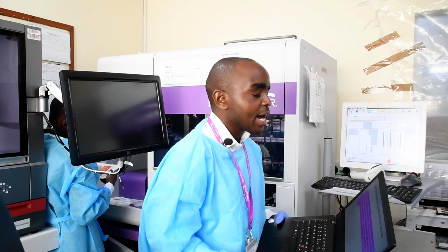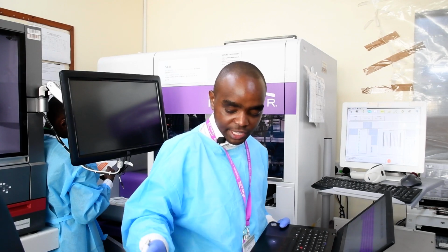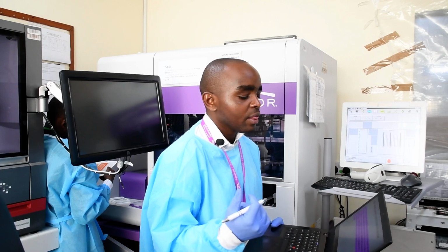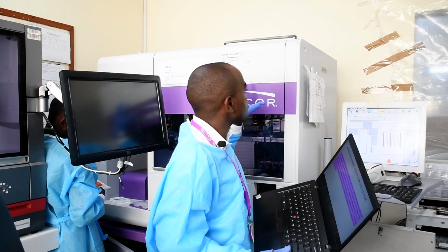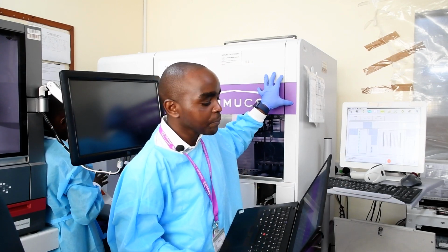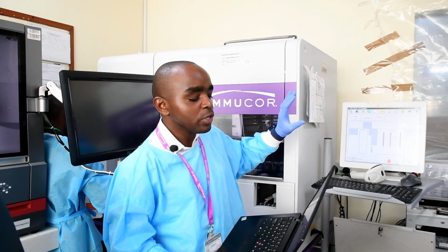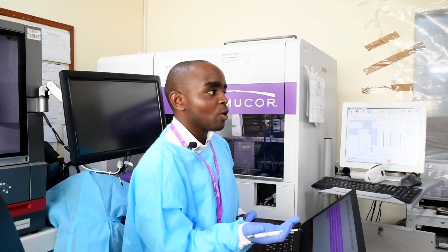Now for the IgG select plates, it will use the capture select plates, and then it will add 50 microliters of PBS to the selected wells, meaning that whole strip, and then it will add 20 microliters of 3 to 5% reference cells. So it makes its own cell suspension, again according to whichever antibody you are doing. Then it will centrifuge. Remember the capture technology: you have to make a monolayer on the plates.